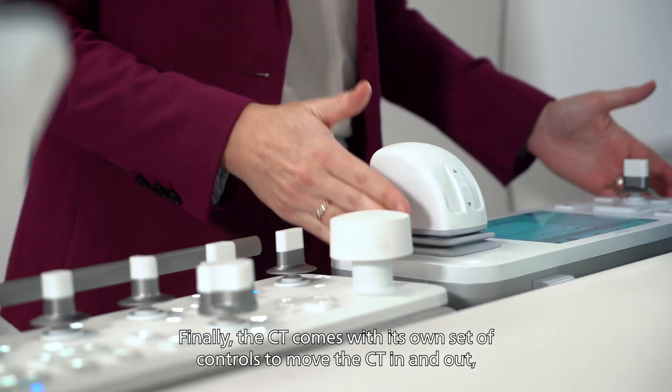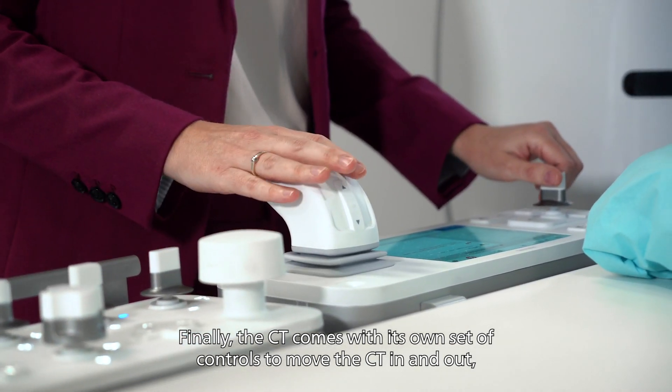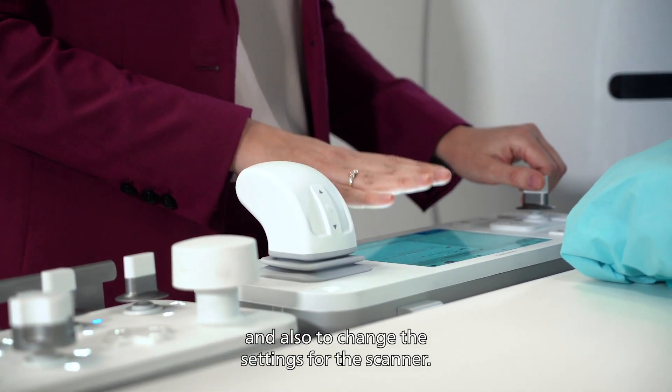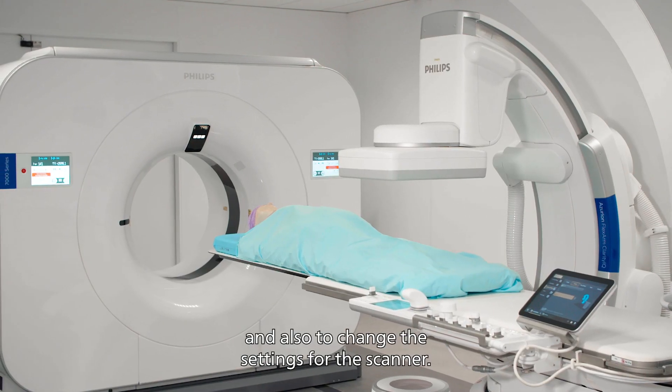Finally, the CT comes with its own set of controls to move the CT in and out and also change the settings for the scanner.